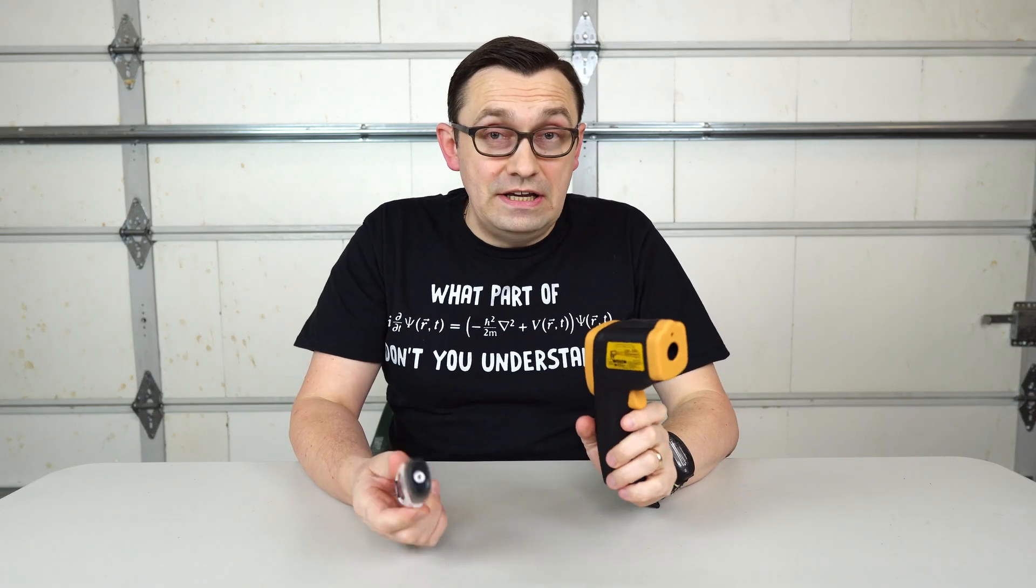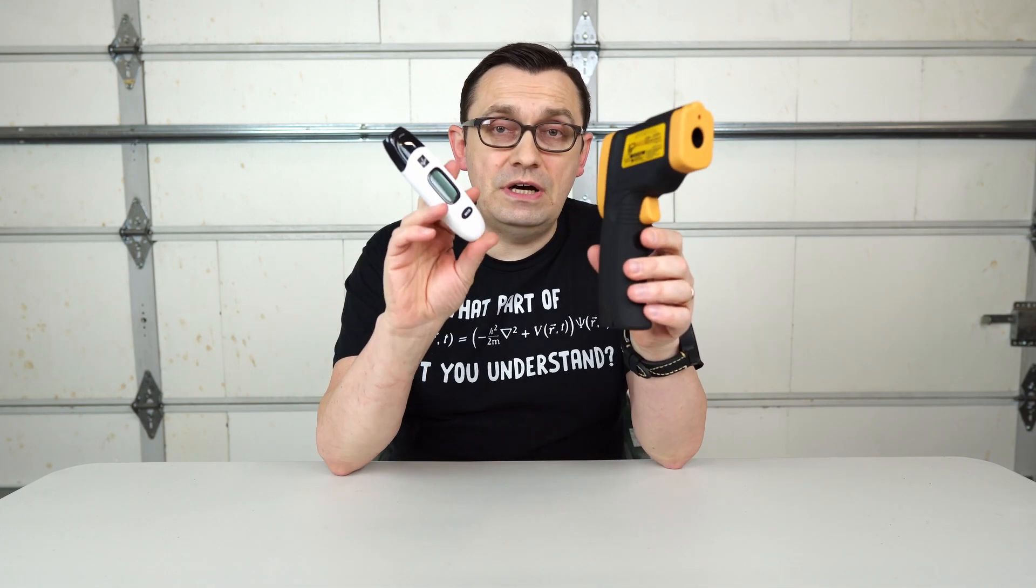That's actually pretty crazy. As you guys can see, this thermometer is obviously not as reliable as this professional medical thermometer is. I'm actually a little bit surprised how much of the difference between these two thermometers are.